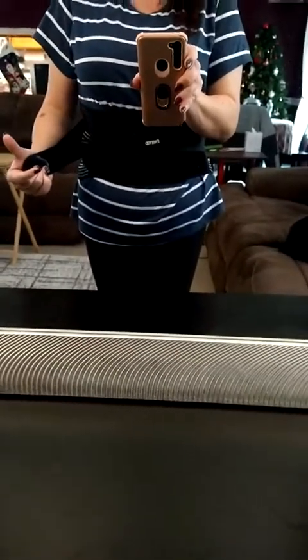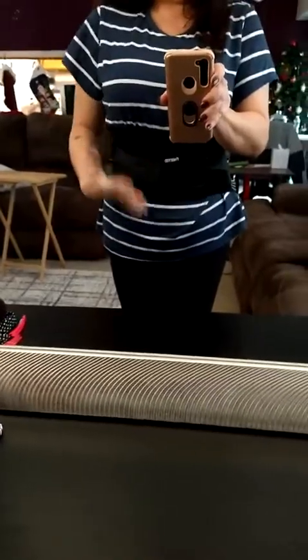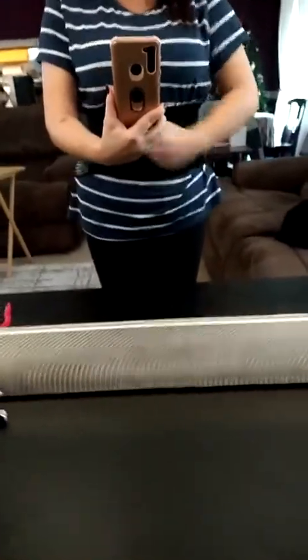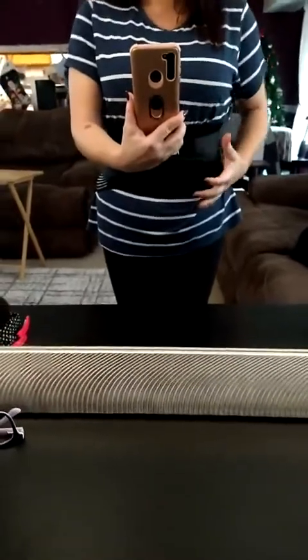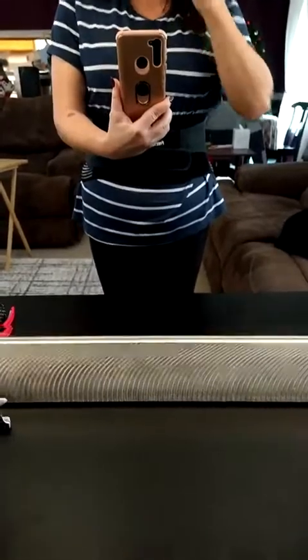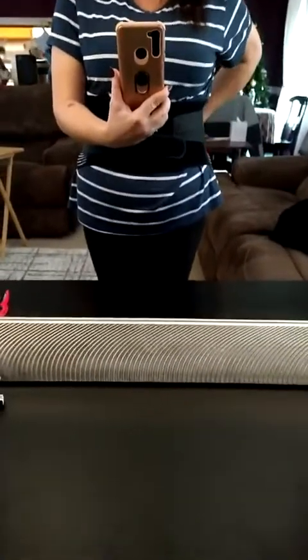When you put the belt over your waist it attaches with velcro, but these two straps — one on each side — you get to pull and make as tight as you want while the belt stays in place, which I love. You're not pulling and tugging trying to keep it in place or keep it from sliding. I could feel the wire in the back keeping my back straight and supported — it's not painful.